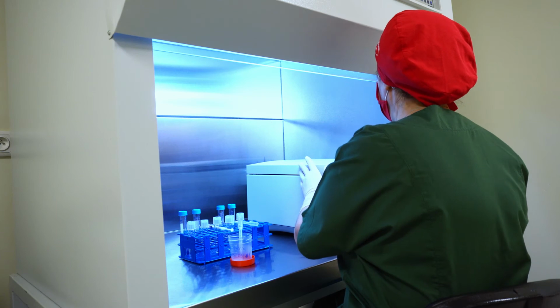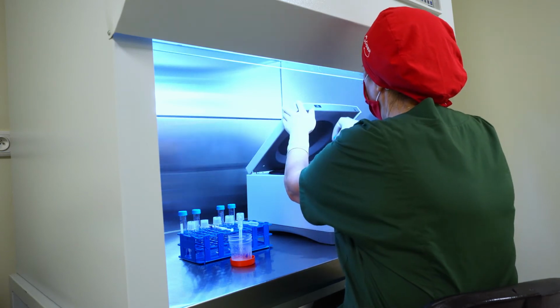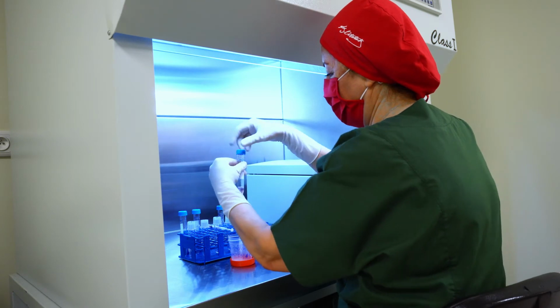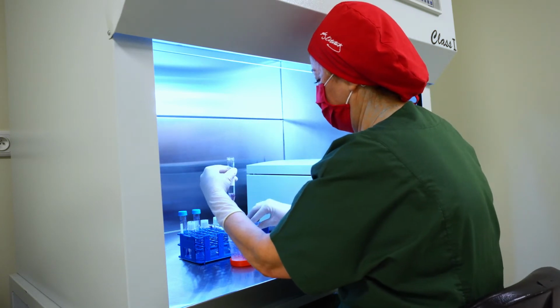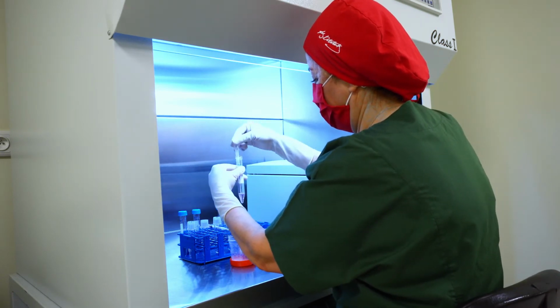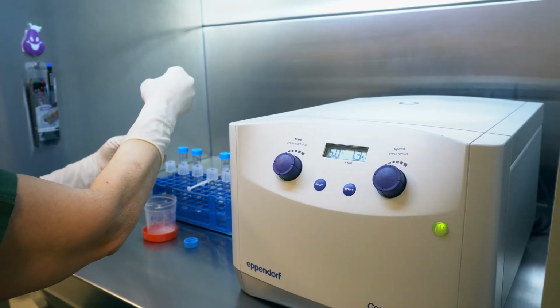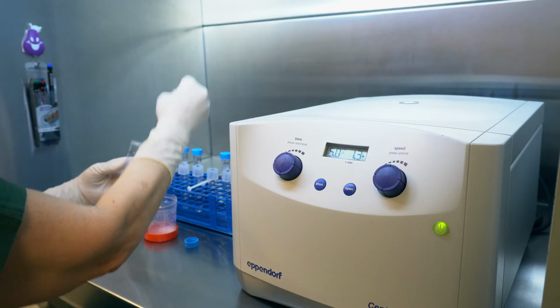Conventional IVF procedure, a step-by-step guide. Semen quality is the key point while deciding to do CIVF or ICSI. After preparation of the semen sample via density gradient technique, sperm concentration with progressive motility is defined.